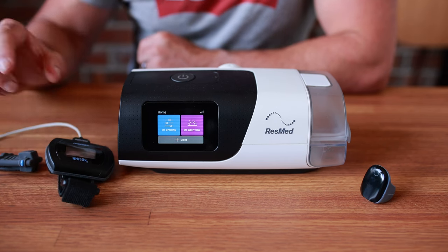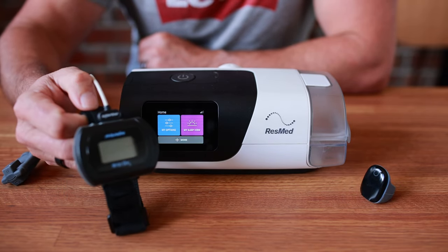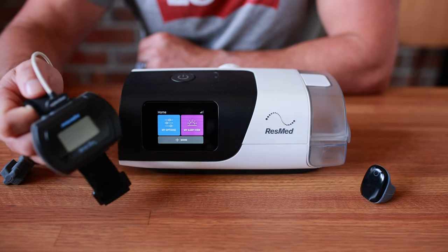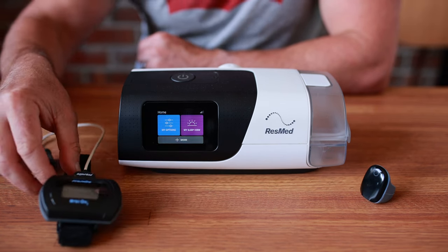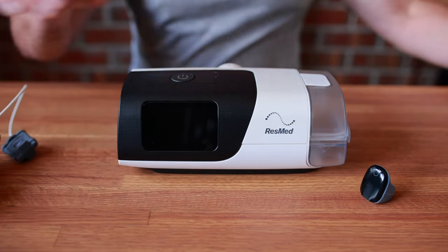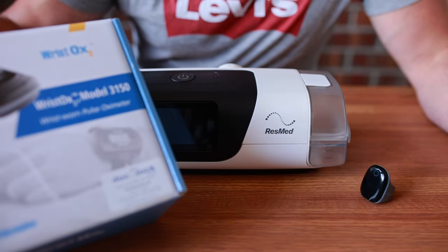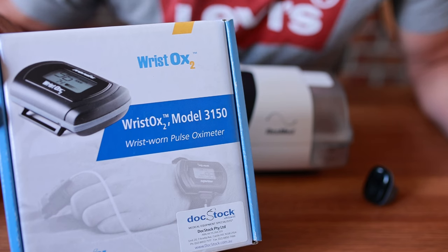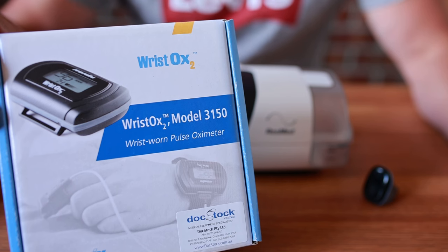After a lot of research, I finally found out that this is the model they are using, and I'm extremely disappointed because it's clearly aimed at sleep professionals — your sleep physicians, your sleep clinics — and not at your everyday patients, which is what I was really hoping for. The model is this one here: the Nonin WristOx model 3150, and it's the Bluetooth version.